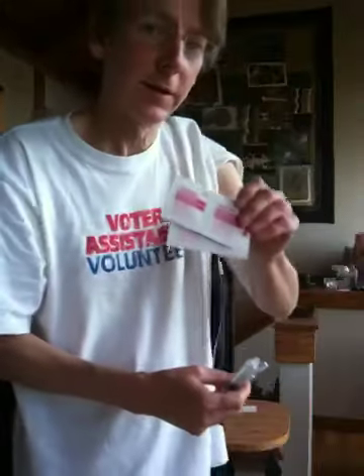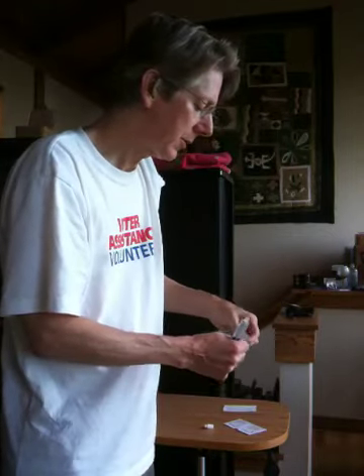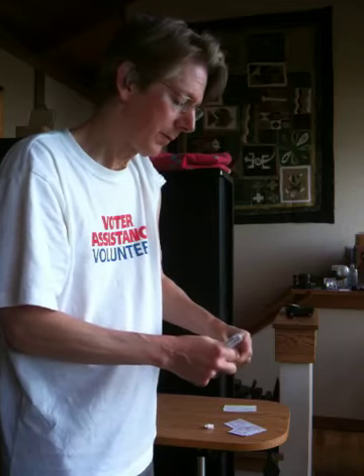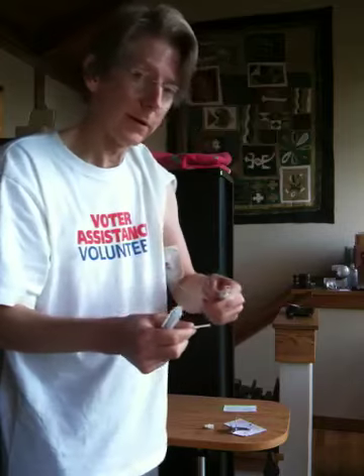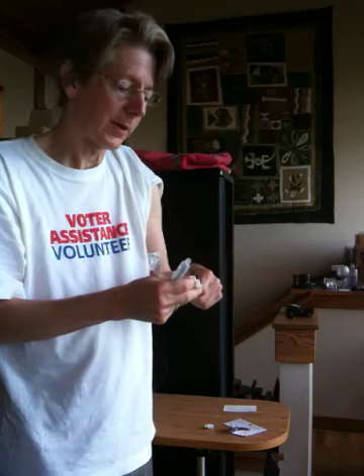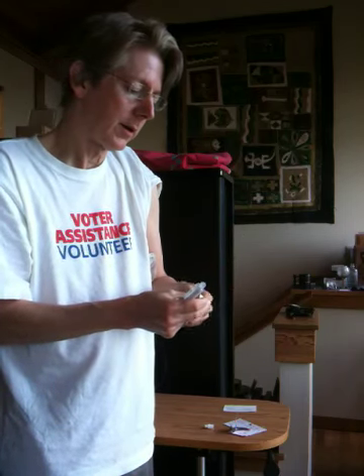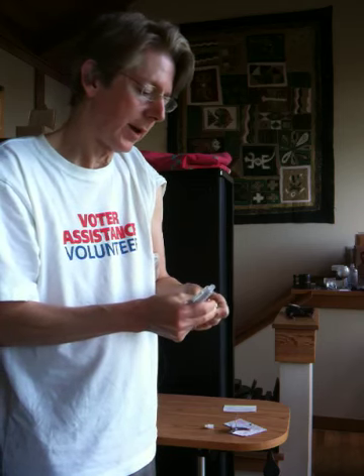I have to use alcohol wipes all the time to make sure contaminants don't get in. This is an alcohol swab, and this is the valve that protects the tube from admitting contaminants during the day.